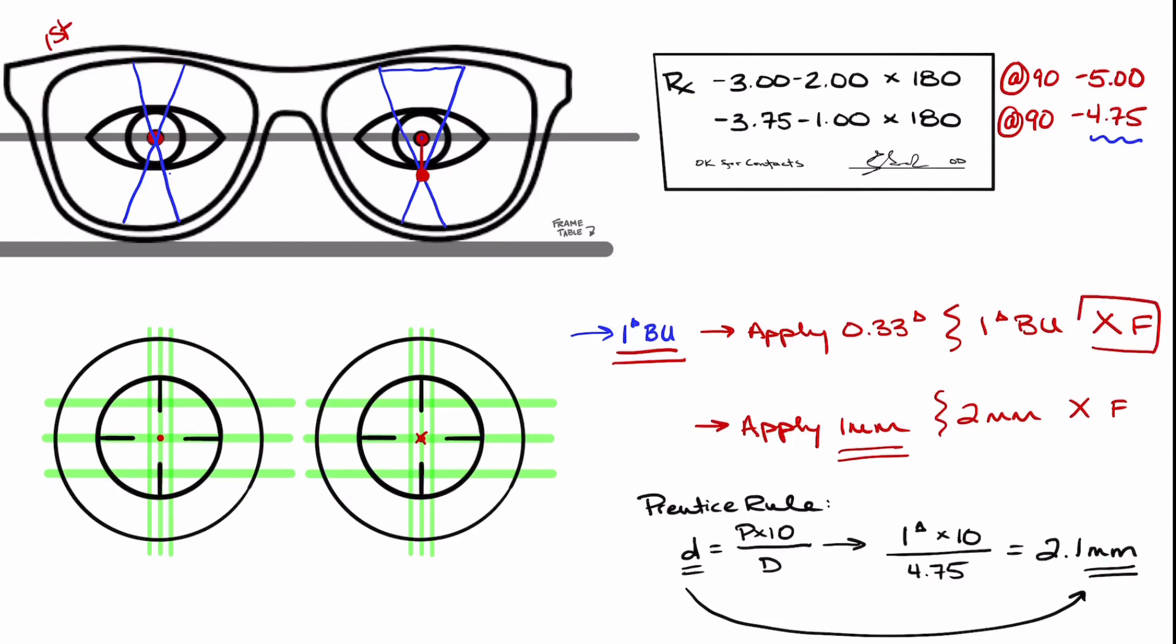Since both tests failed the prism amount and the millimeter amount this lens is ultimately not going to work and it will fail.